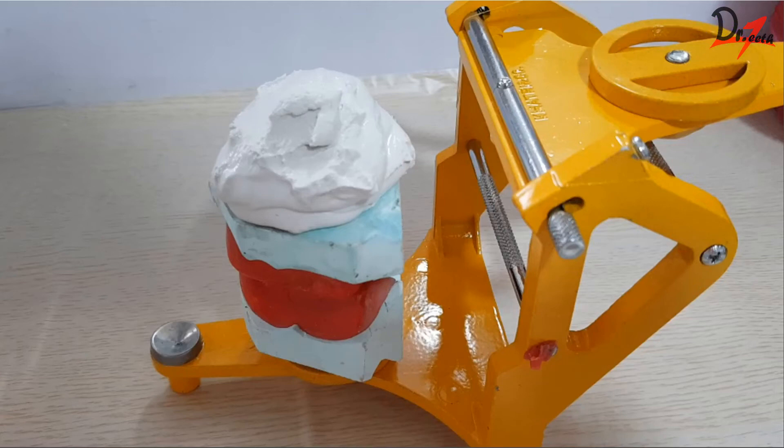One little tip. Keep a bowl of water and dip a cotton and smoothen and give shape to the plaster according to the cast with the help of that cotton. This will give neatness to your work and you will require just minimal sandpapering afterwards.